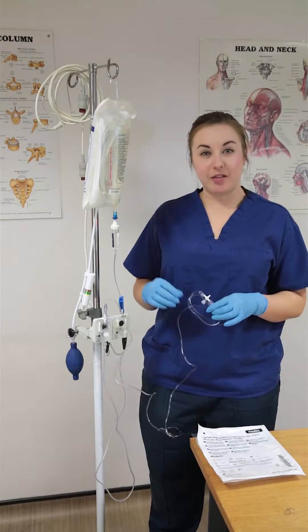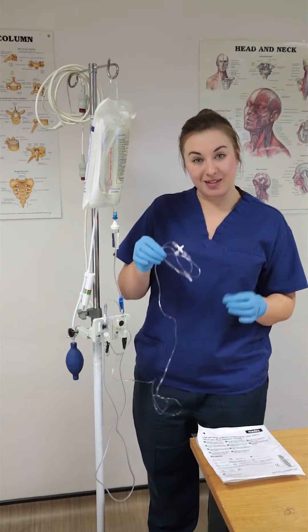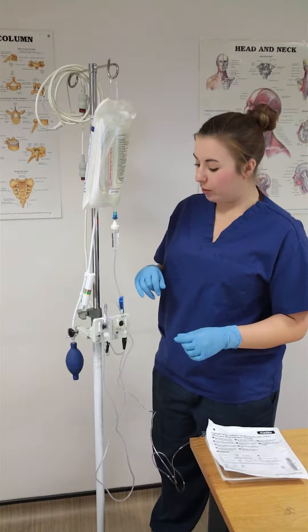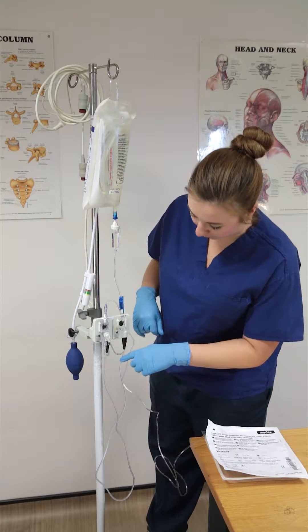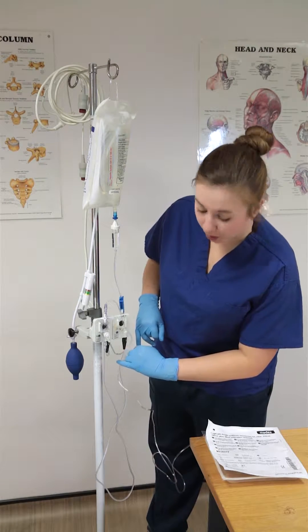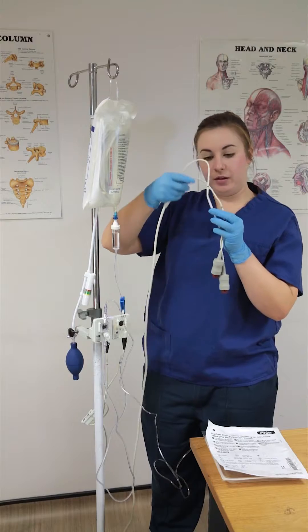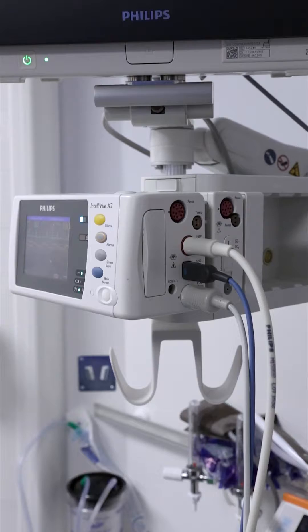So you're ready to zero your line and set the transducer cables. At this point you need to put the line down to be able to touch your transducer cables — normally just pop it back in the packet, which was clean. Make note of which side of the transducer cable you've put it in. Under here this one has got one black stripe on it — that's line one — and this one has got two black stripes on it — that's line two. On your cables you also have line one and line two, so we're going to plug in line one.